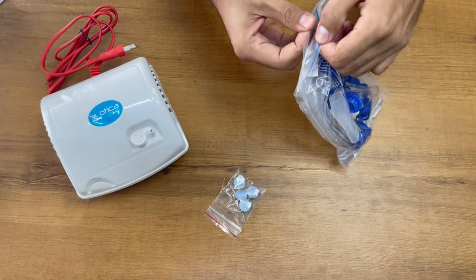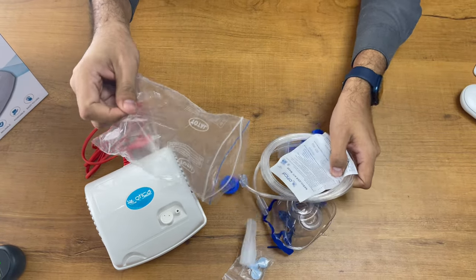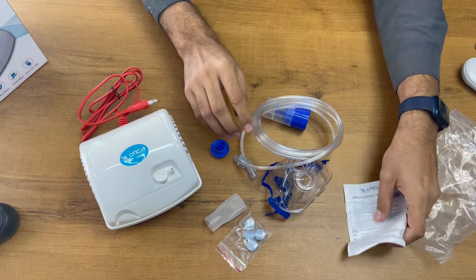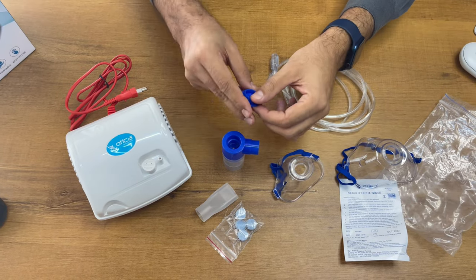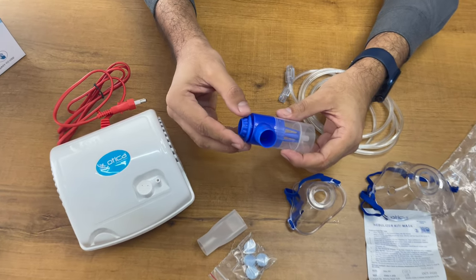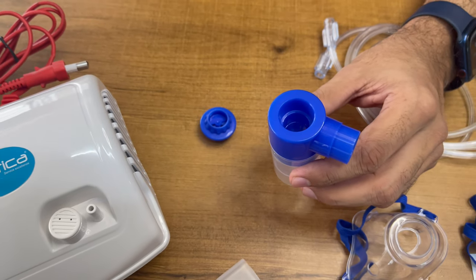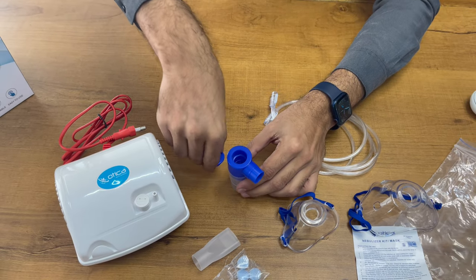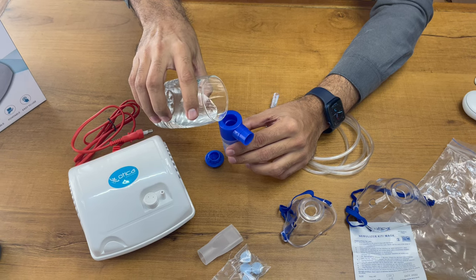This is the main unit. We are opening the product mask. So this is the nebulizer kit and user manual. This is the main nebulizer chamber and this is the flow regulator — you have to put it on here. For reference, we are just placing water inside.